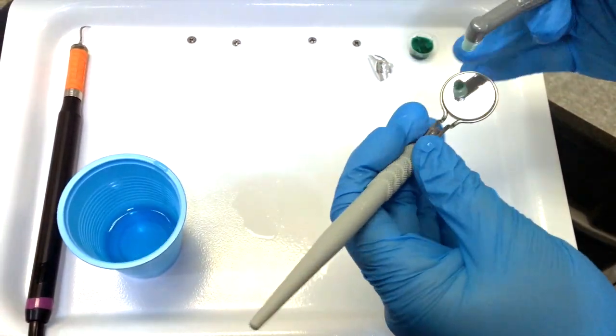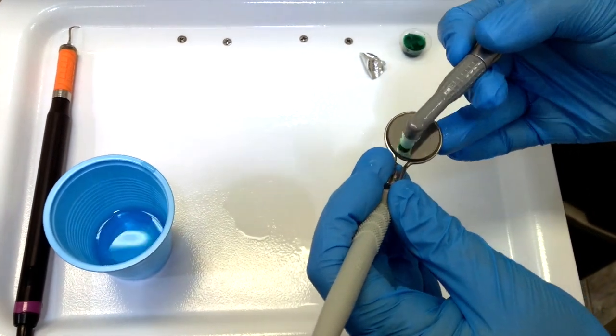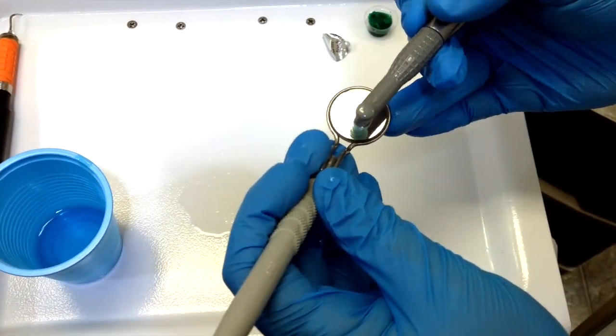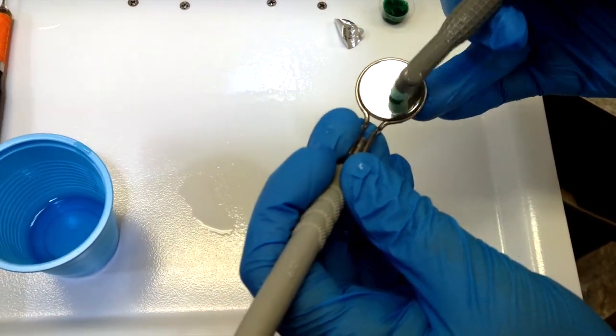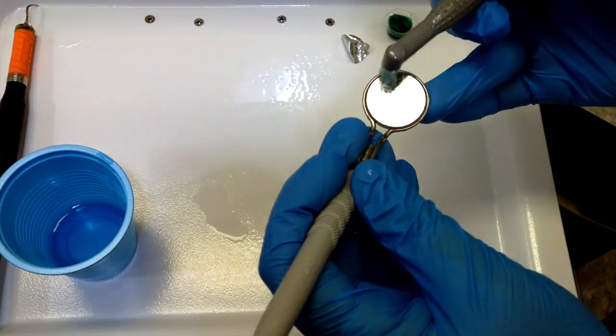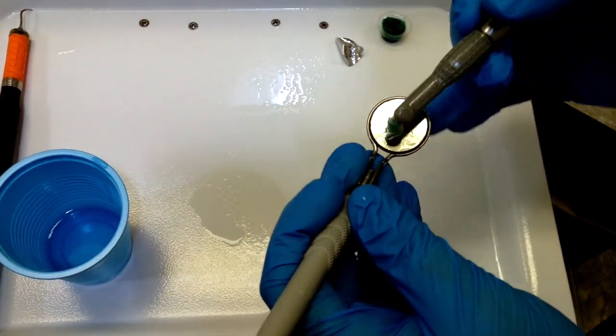Just put a little bit on your cup and just gently do some polishing on your mirror. This will create a barrier so the water doesn't bubble as much.